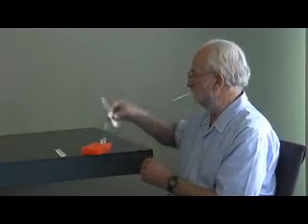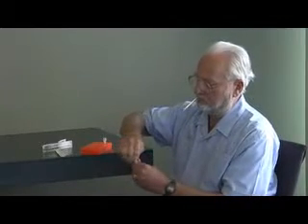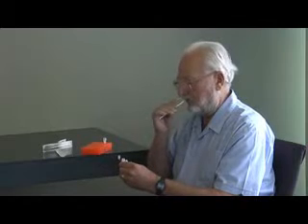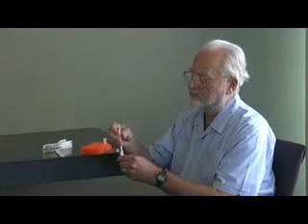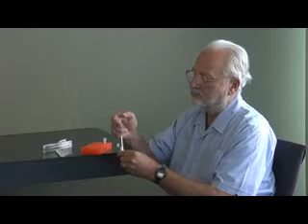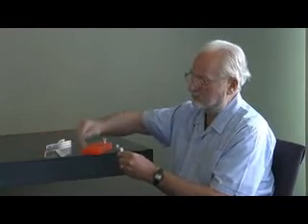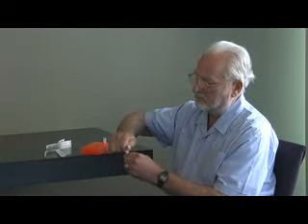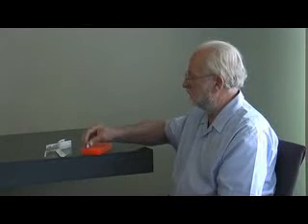After you've swabbed for 30 seconds, open the tube and bend the cap back — it'll stay open. With the liquid holding the tube open, insert the ridged end of the collection brush into the liquid and press firmly with your thumb on the other end. This end acts as a plunger to eject the tip into the liquid. Screw the cap of the tube to seal it tightly. The brush containing DNA is inside the tube, and the stick can be discarded.